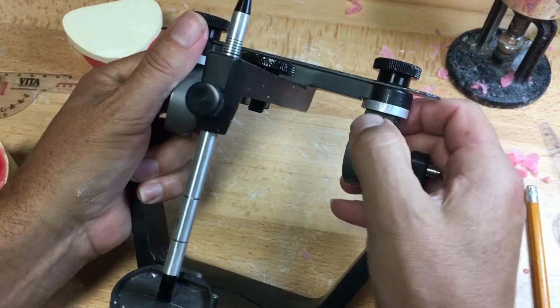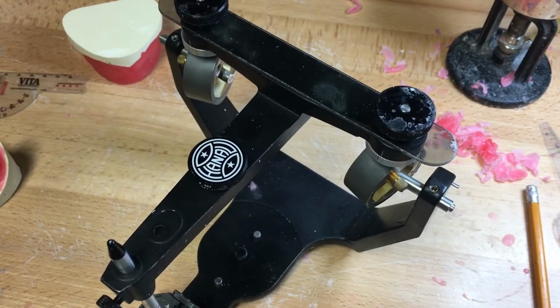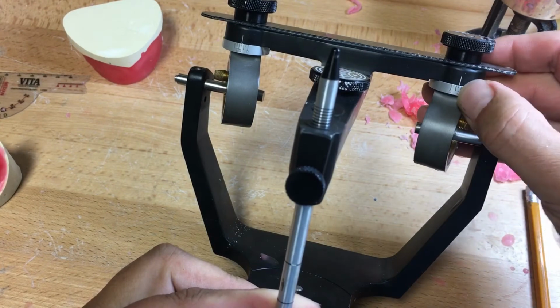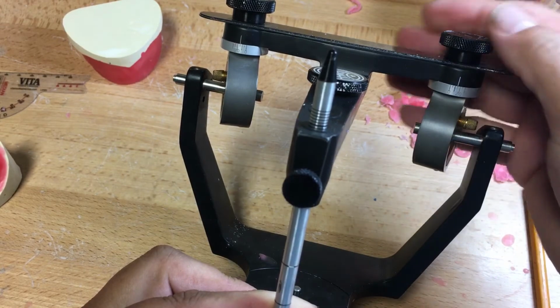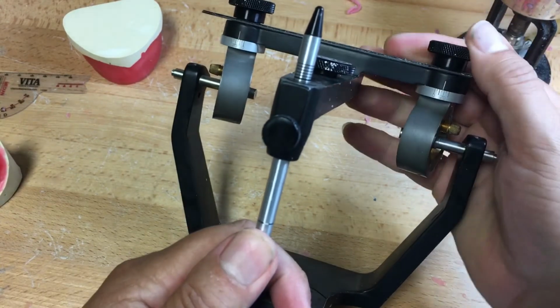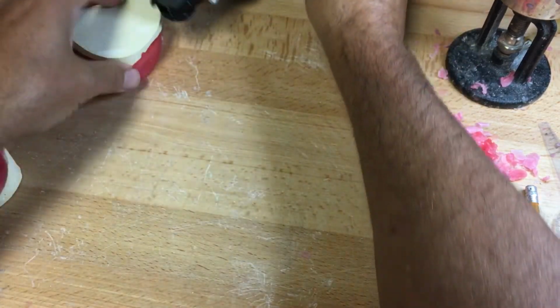If you look at our articulator, 0, 5, 10, 15, 20, 25, 30. There is an increment here, 5, 10, 15, 20, 25. Now, you can see there is a demarcation of 10, 15, 20. You can barely move that between the two. So this will be our Ronco cooker. Set it and forget it. 15.